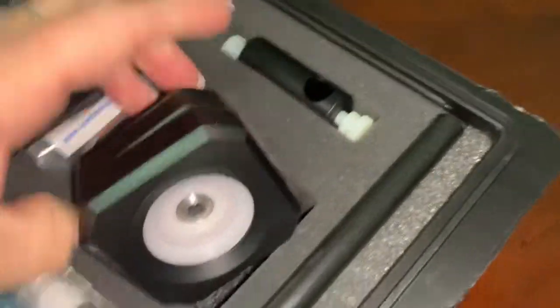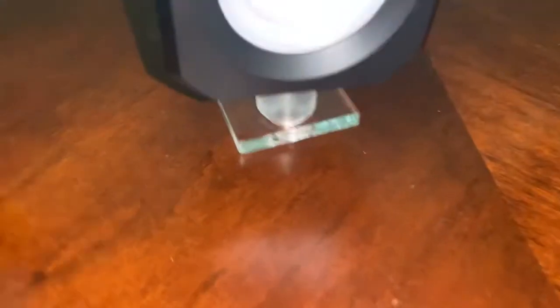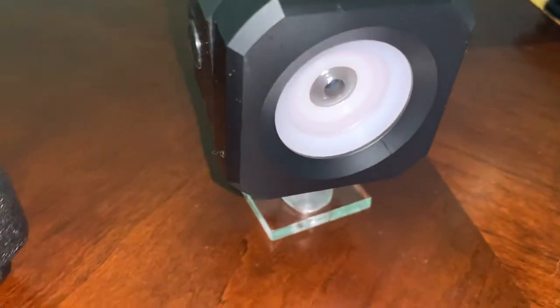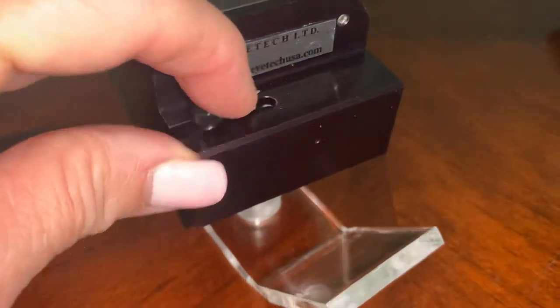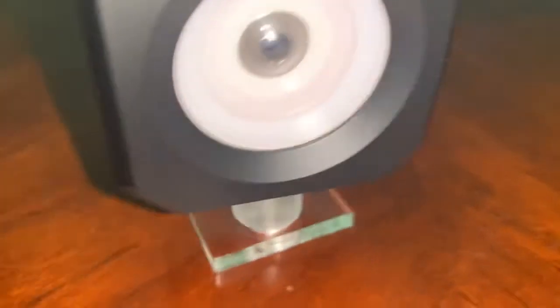So this is a model eye with a little stand that comes with it too, if you want to keep it in a stand rather than in the case itself. It has a cornea, an iris, and a pupil. It is a very simple but fantastic device. On the back is a pneumatic adjustment to change the eye pressure from a low to a medium and a high setting, so your trainee won't have the same pressure every time he or she practices.